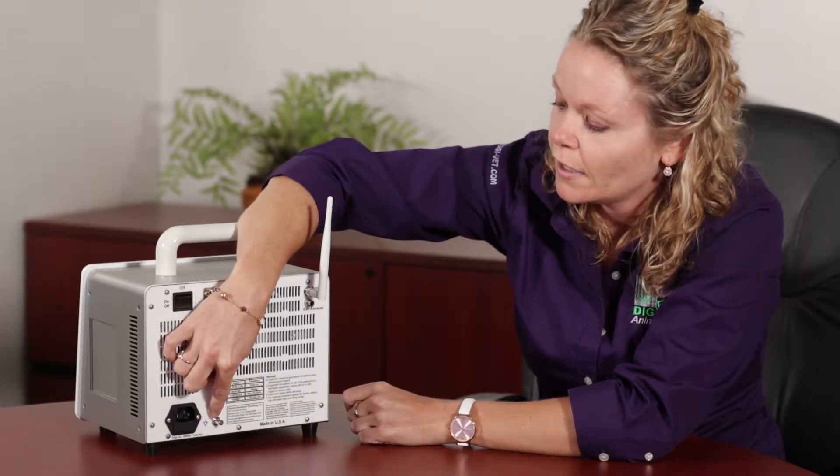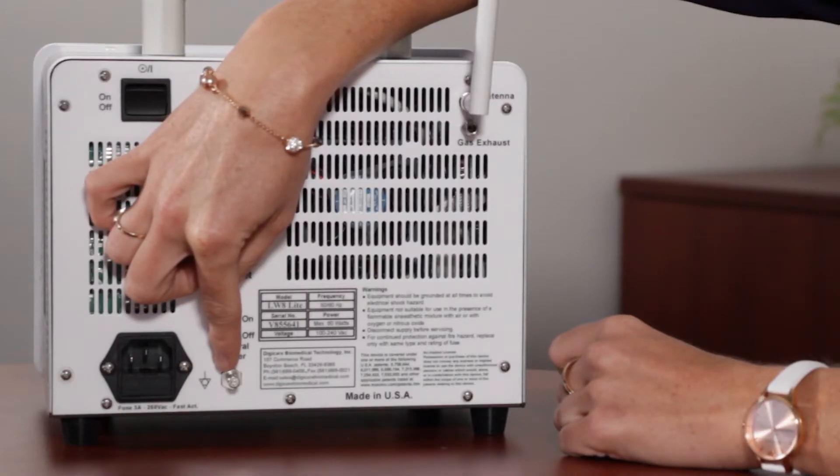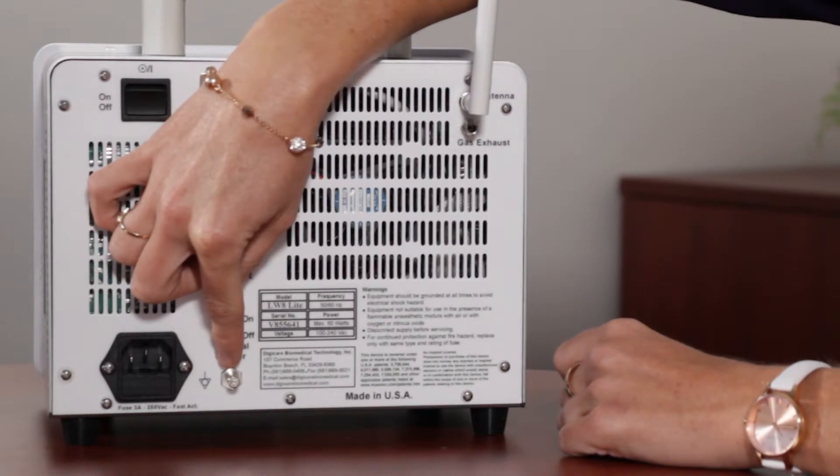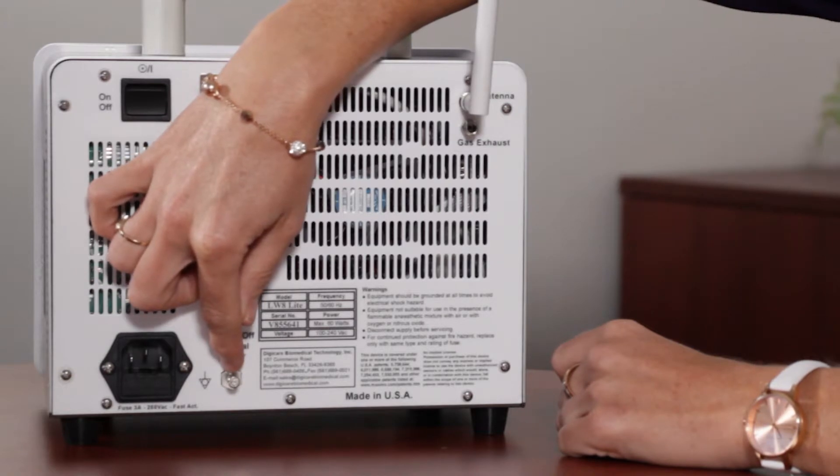This is the grounding terminal. Normally, this doesn't have to be used. But if you have any interference with your ECG, tech support may recommend to send you a grounding terminal to connect to this port.